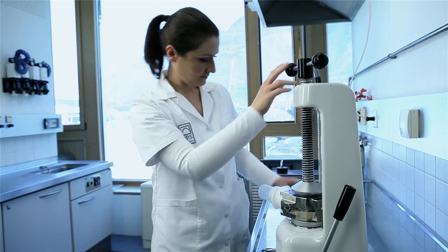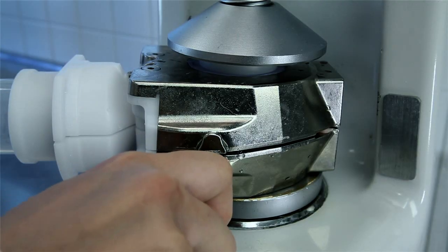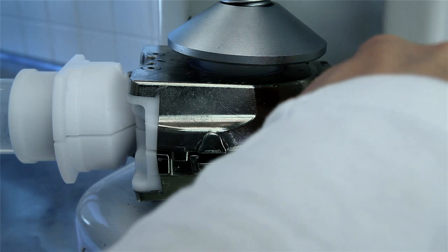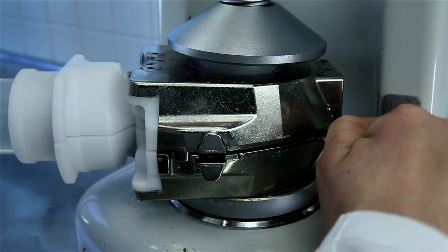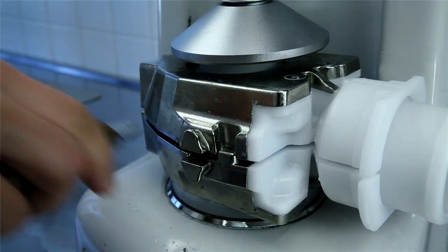Use a plaster knife to lever the upper flask half off by sliding the knife into the seam between the two flask halves. Rotate the flask and repeat the procedure.